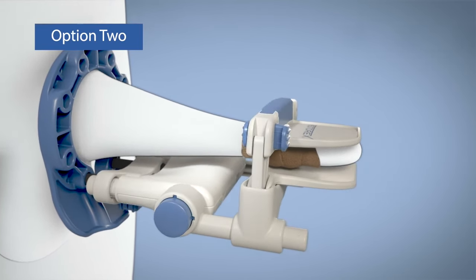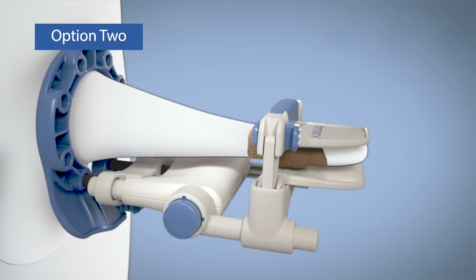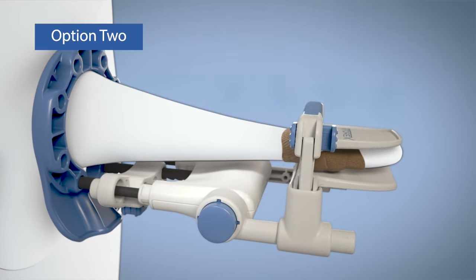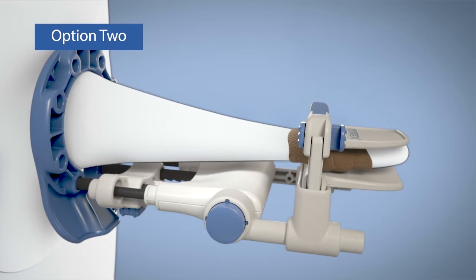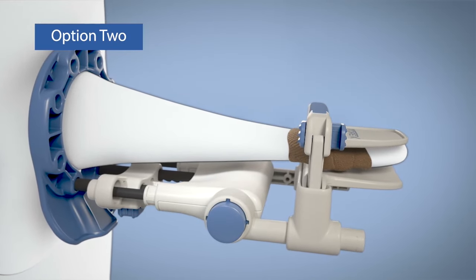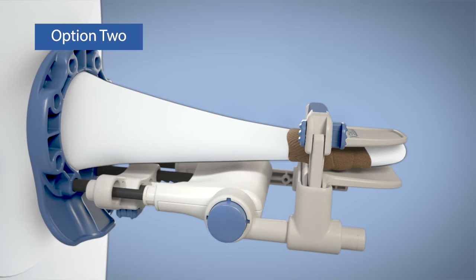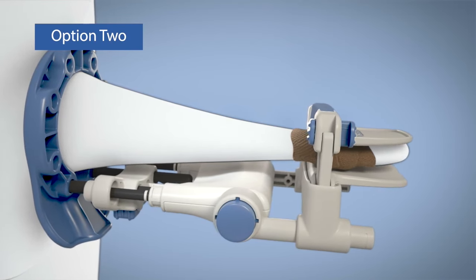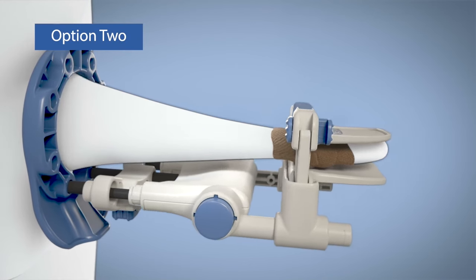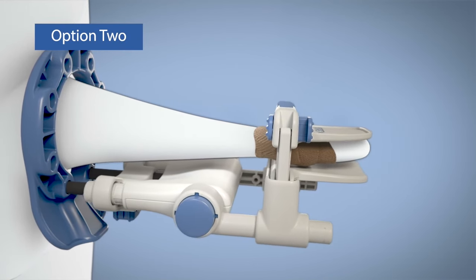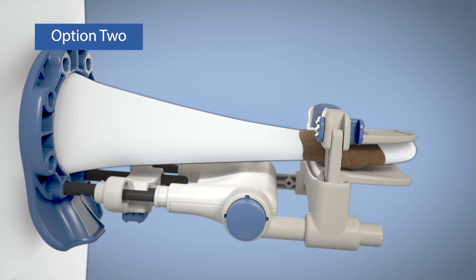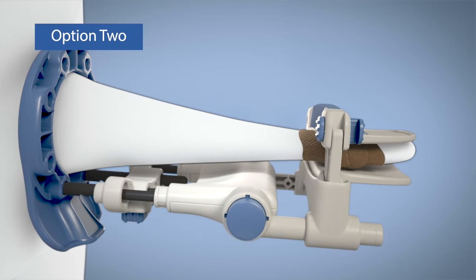If they do, relock the tension rods, advance one more notch on the extension rods, and release the lock on the tension rods once again. Repeat until the white bands do not show. After a couple of minutes, tissue will begin to stretch and the treatment zone band may reappear. If so, advance one or more notches on the extension rod to stay in the traction zone. If you can comfortably tolerate more traction, continue advancing.